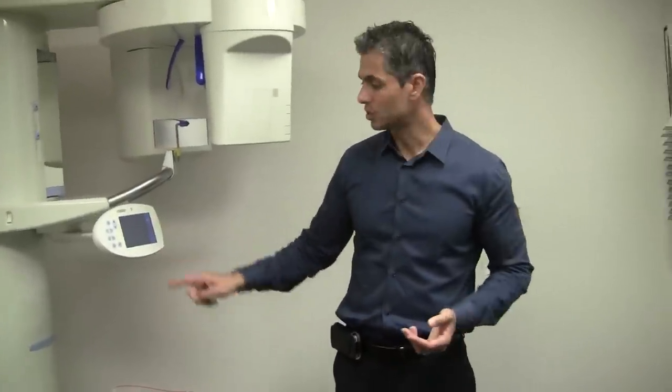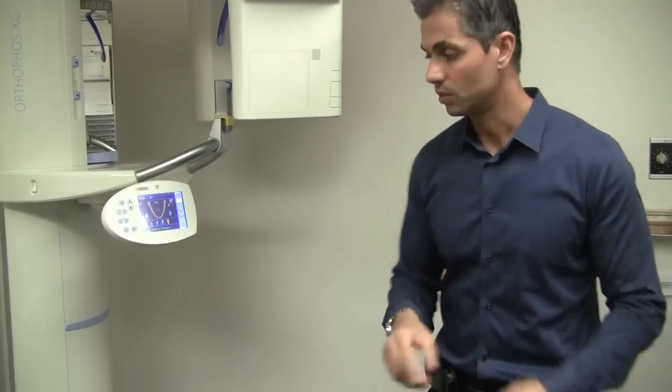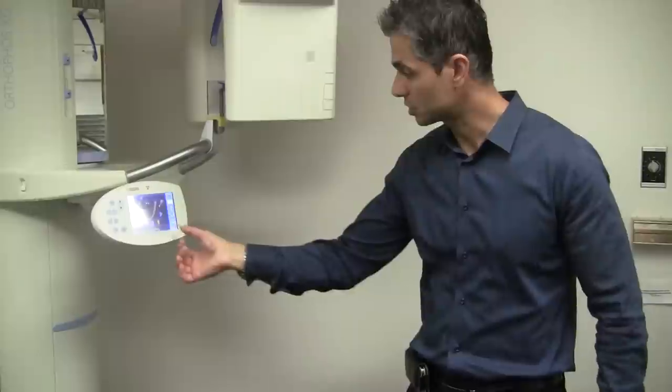It's just a touch screen. Make sure it says P1 — before, it wasn't showing you this. This just looks better because it gives you a view. Patient size didn't change really; it used to be buttons, now it just looks like pictures.